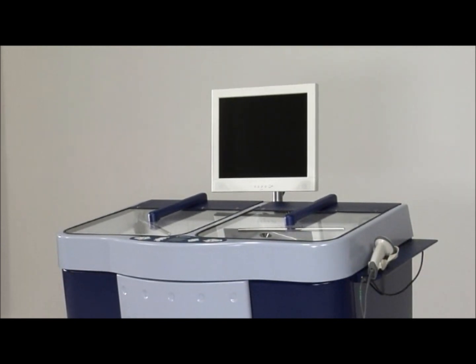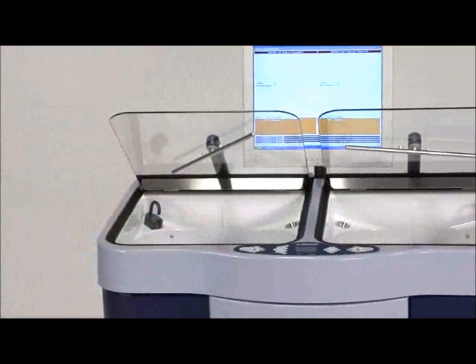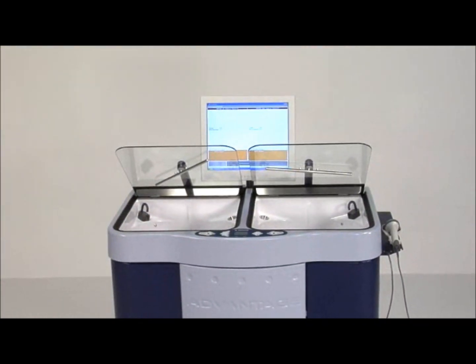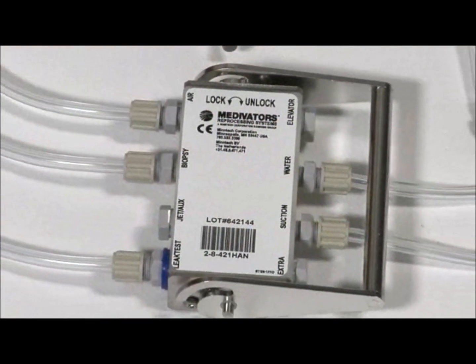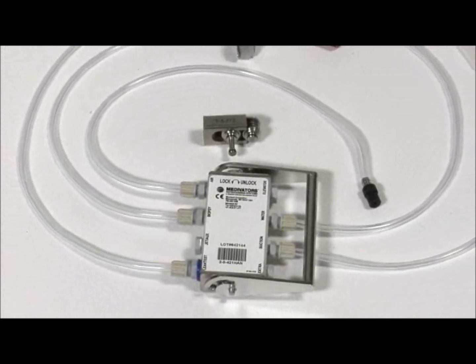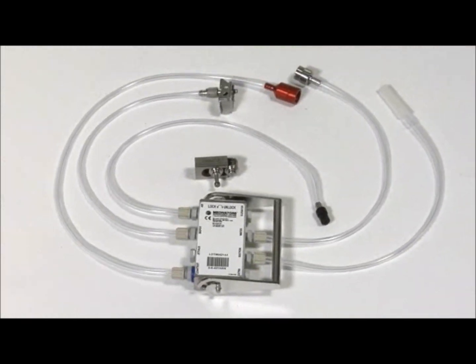The Medivators Advantage Plus system was designed for ease of use and maintenance in the disinfection of endoscopes. Features include asynchronous operation of dual-reprocessing basins with transparent glass lids, hookup blocks that are dedicated to a family of endoscopes to ensure correct connectivity, and flow rates that meet manufacturer's specifications.